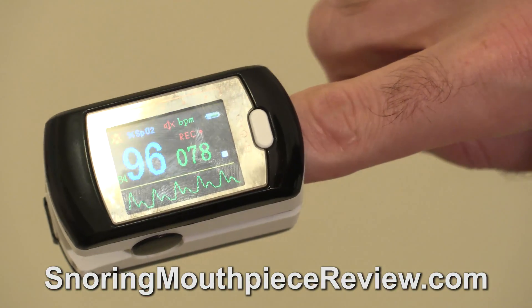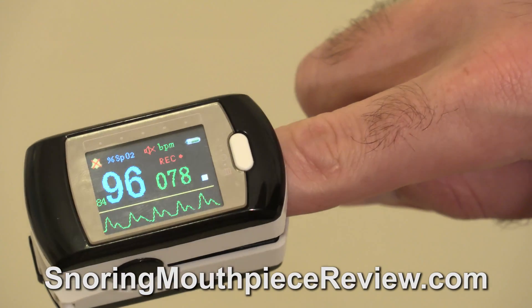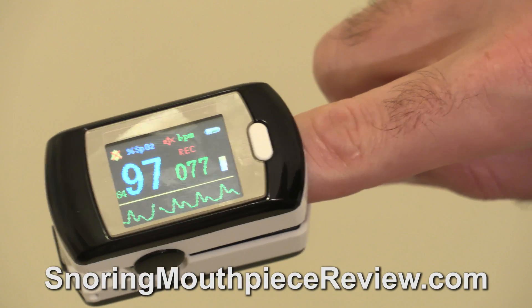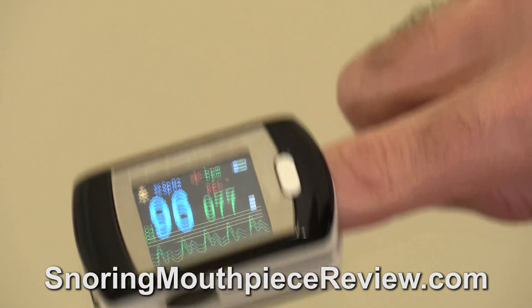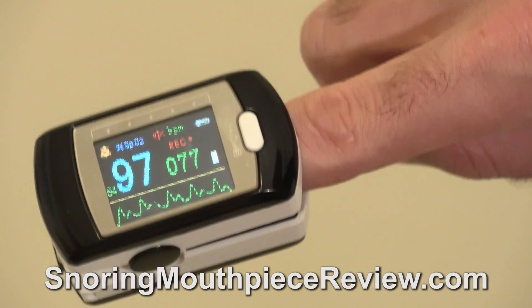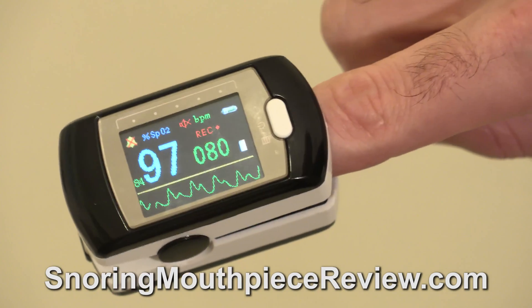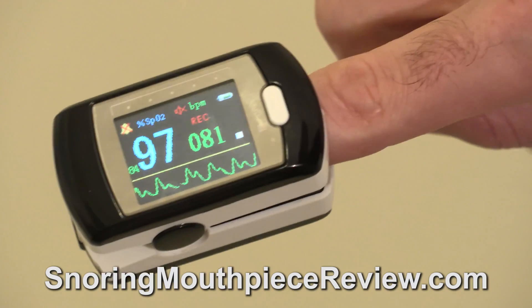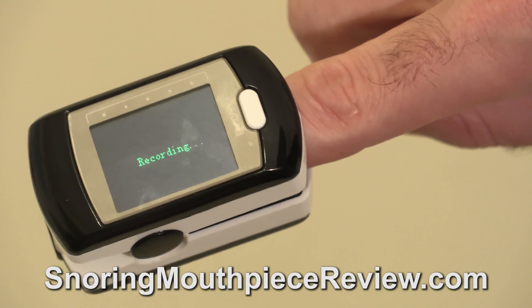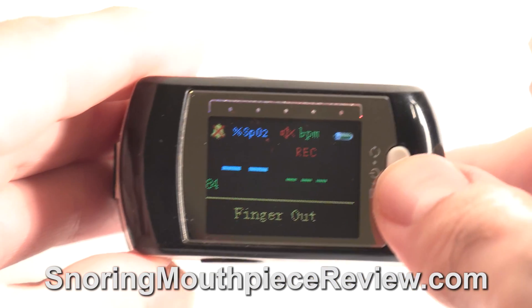The CMS50E can record for 24 hours when fully charged. This is what the pulse oximeter looks like while it's on and displaying data. The left number is the oxygen saturation, which should be over 95% when you are awake. The right number is the heart rate. When this pulse oximeter is in record mode, the screen will shut off.